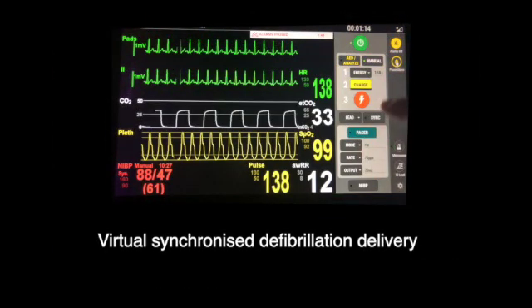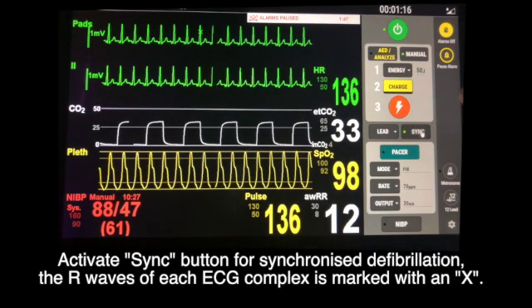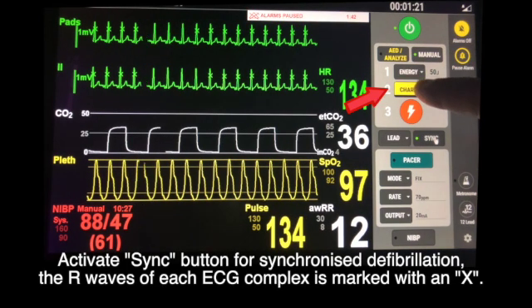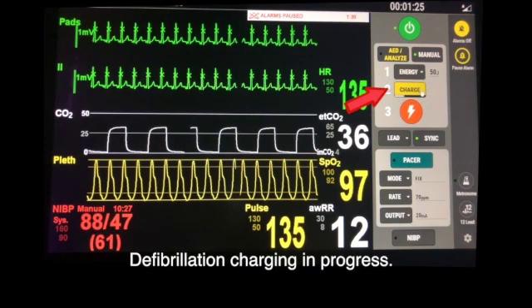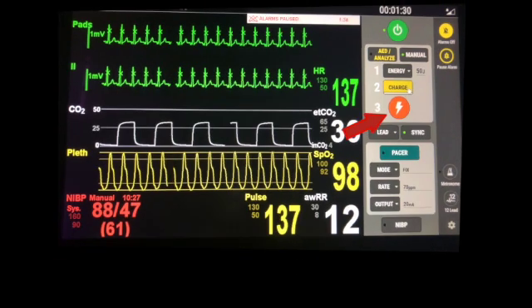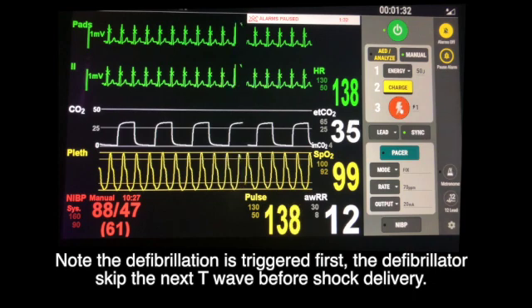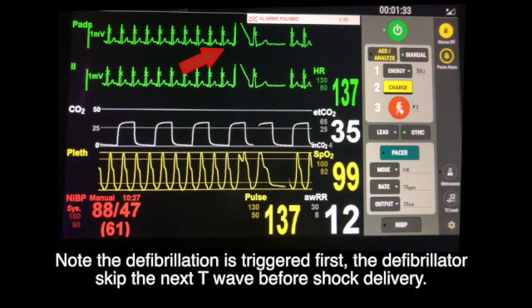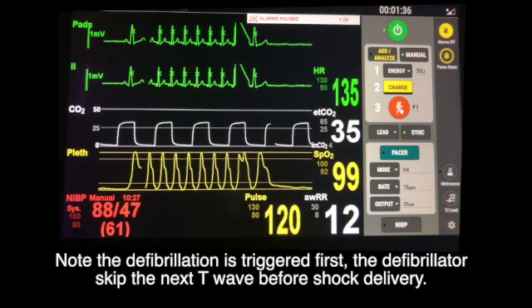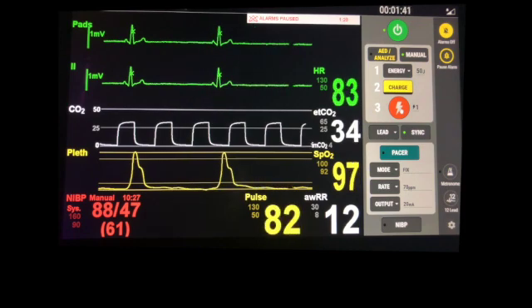For virtual synchronized defibrillation delivery, activate the sync button. The R-wave of each ECG complex is marked with an X. While defibrillation charging is in progress, note that the defibrillator is triggered first and skips the next T-wave before shock delivery.